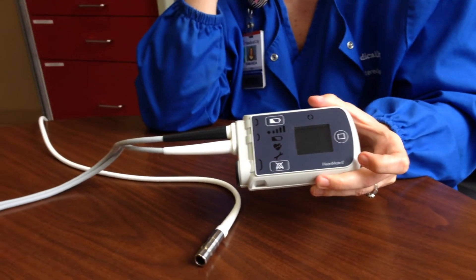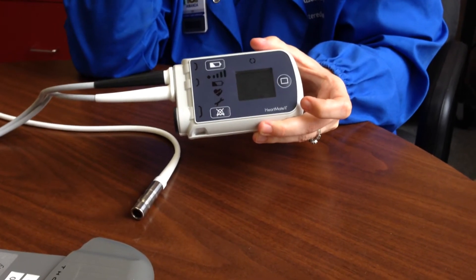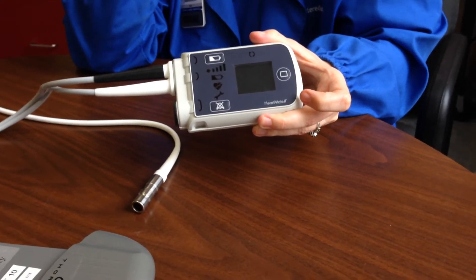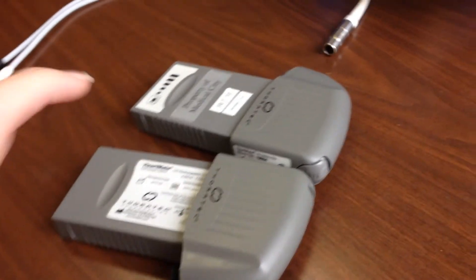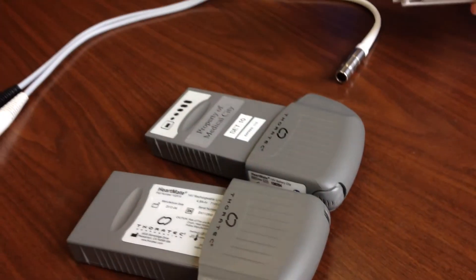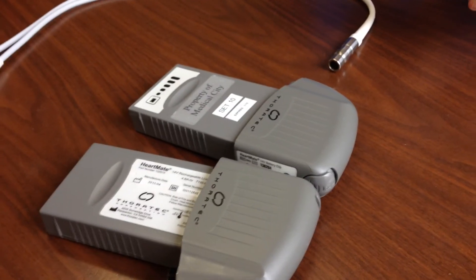For patients at home, they're going to have a machine that has numbers on it and can be hooked up to a large battery that's actually plugged into the wall, so it won't look like these two portable units. It'll still have the two lines and you'll still have to disconnect them the same way.